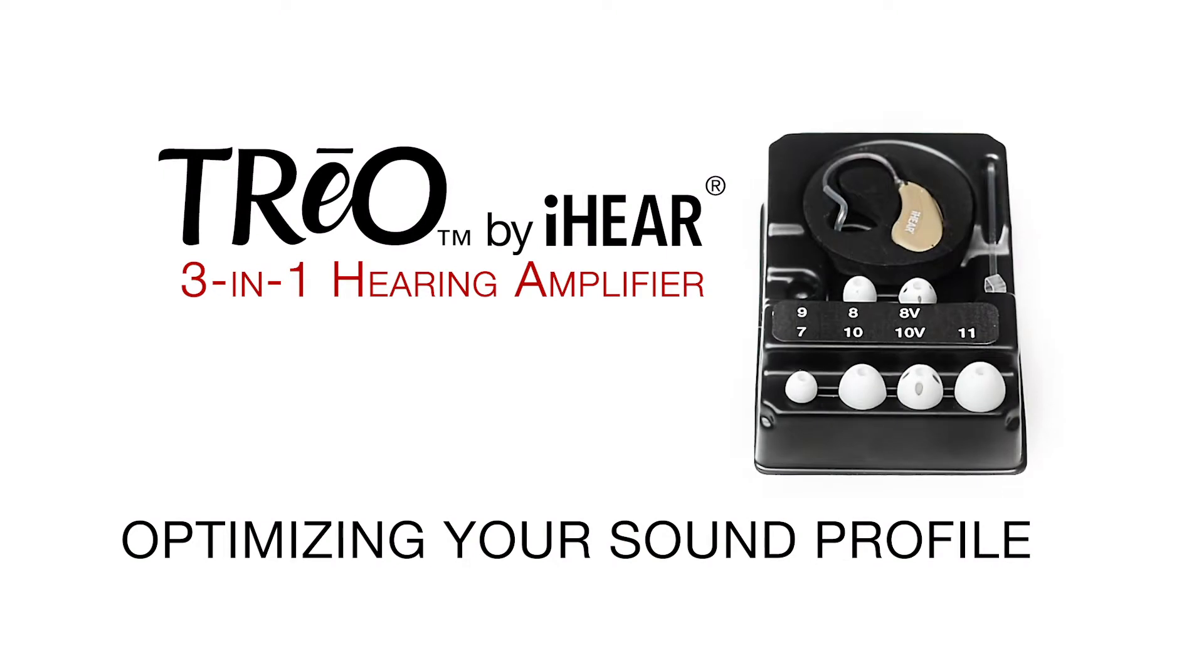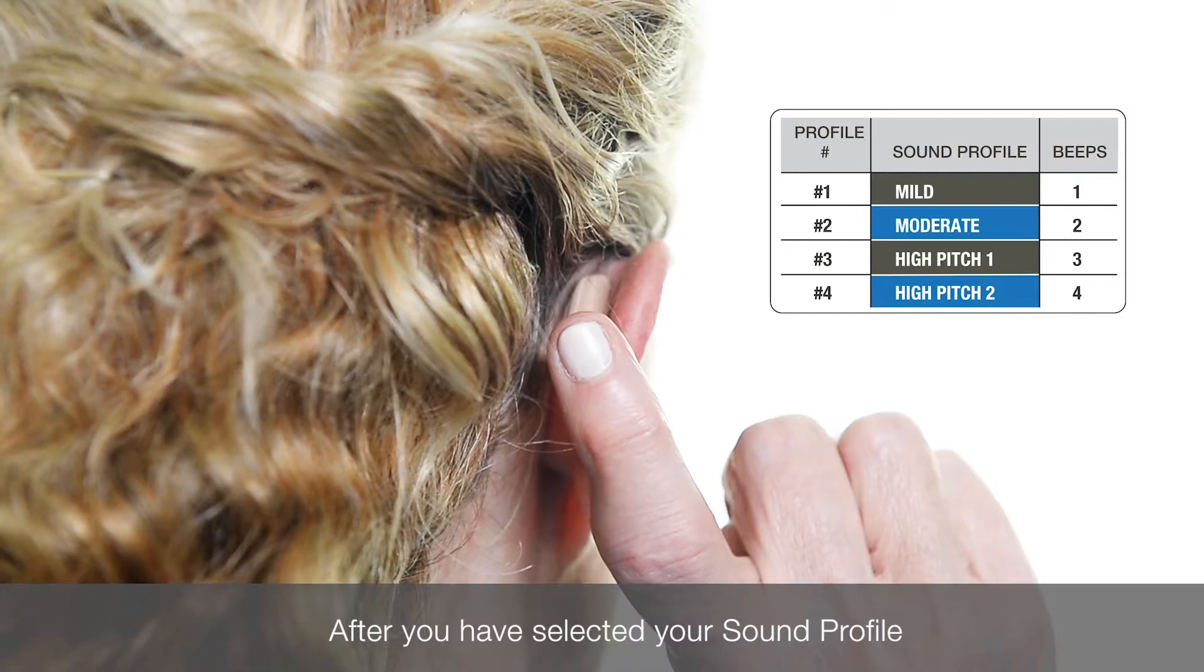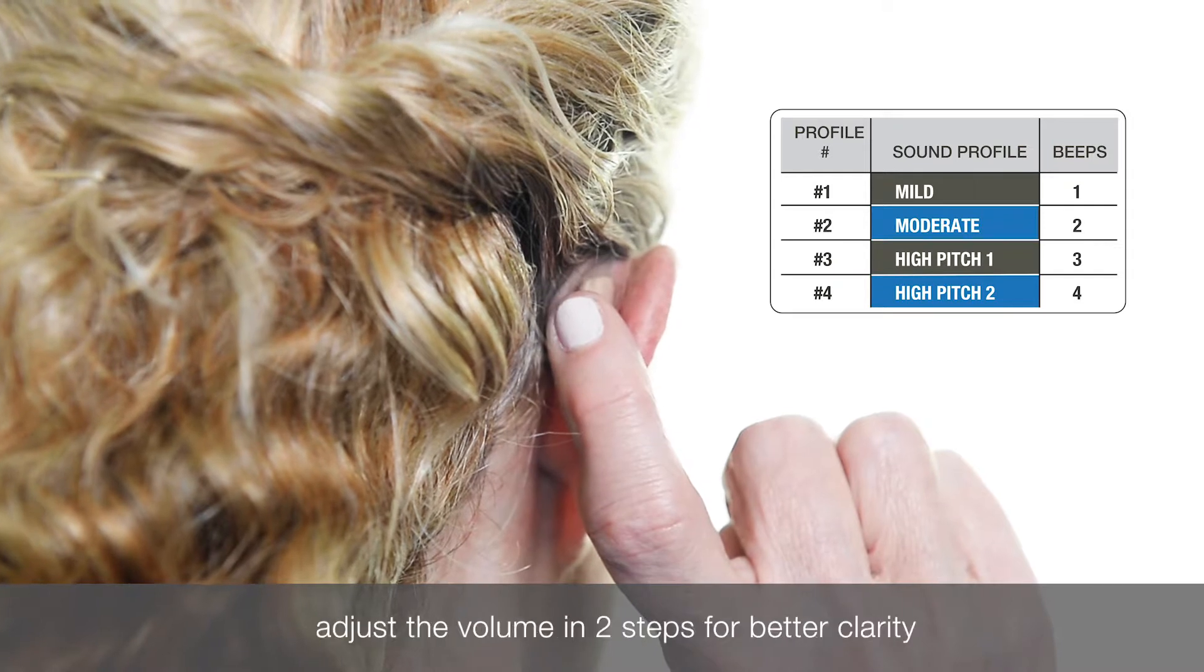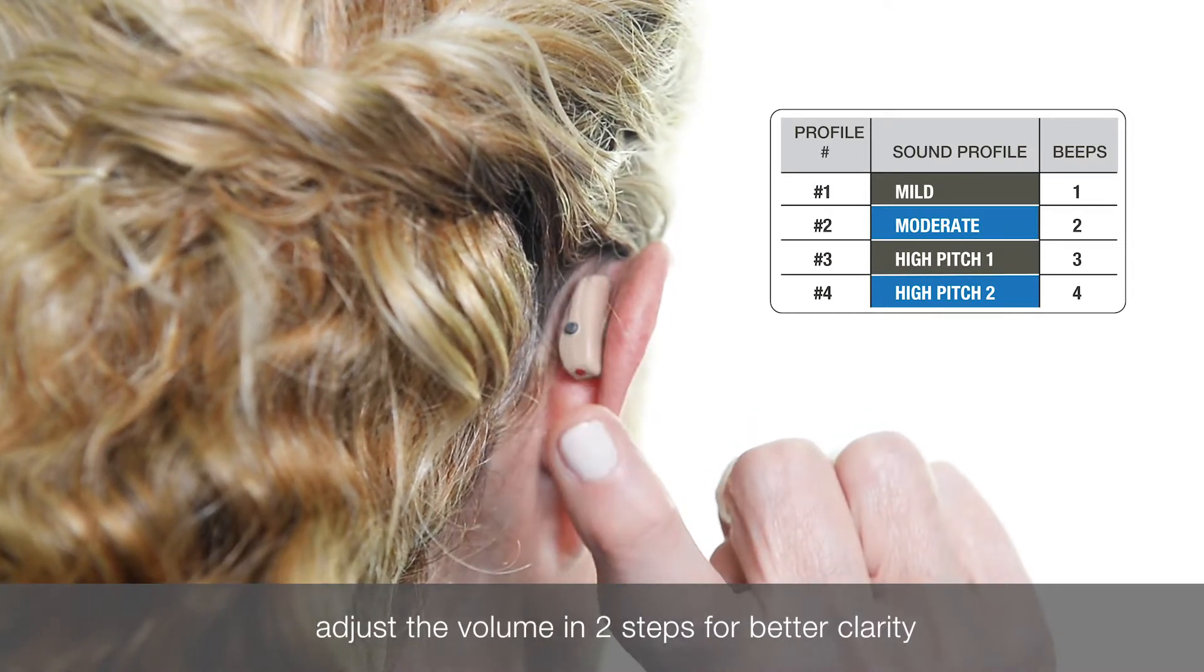Optimizing your sound profile. After you have selected your sound profile, you can adjust the volume in two steps for better clarity.